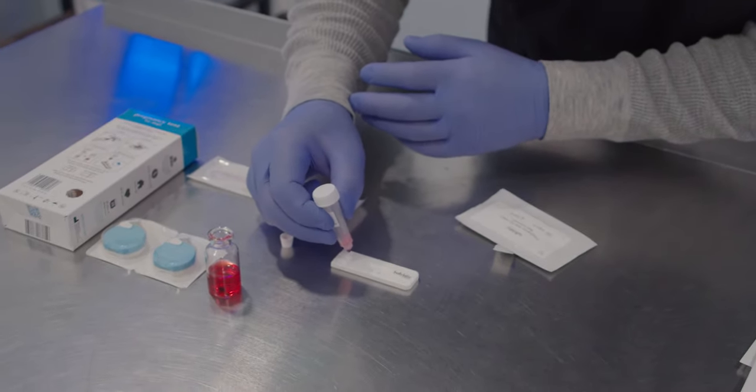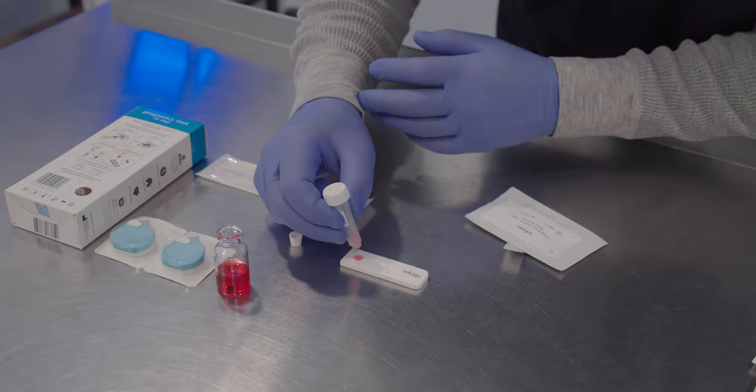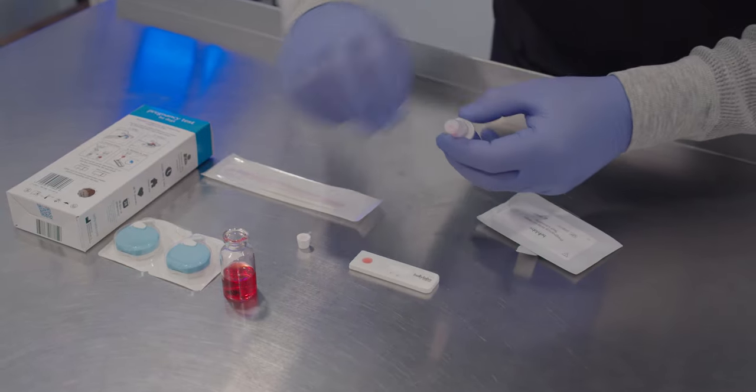Squeeze two to four drops into the small sample well on the test strip. Allow 10 to 15 minutes before results are found.